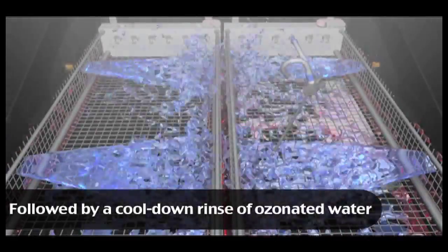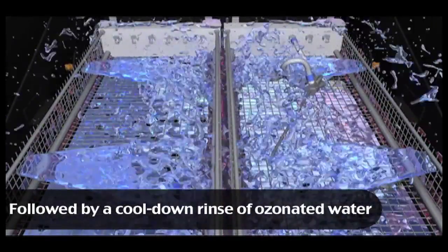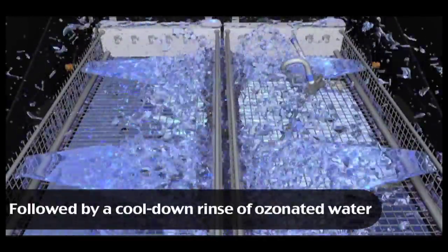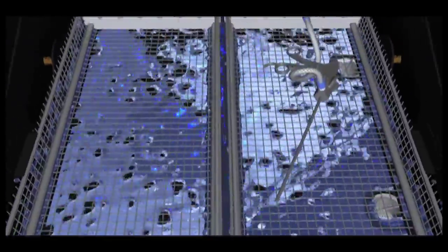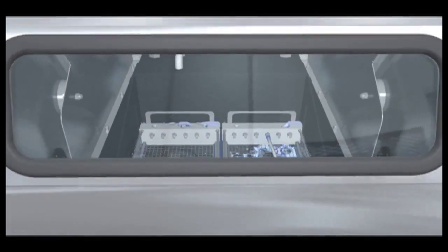After the thermal rinse, the instruments are sprayed with a cool ozonated water rinse. Ozone is the world's most effective bacteria killer and is 3,000 times more effective than chlorine.